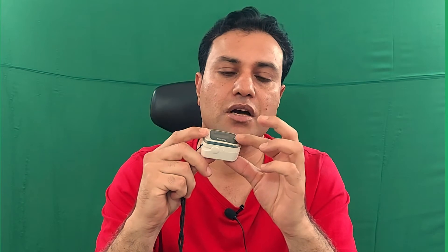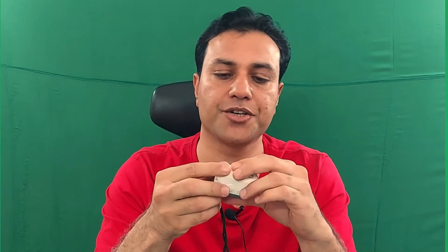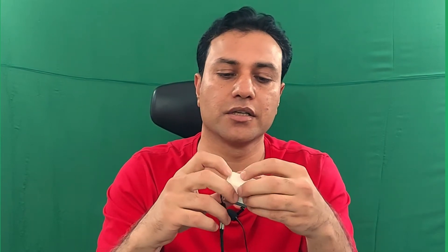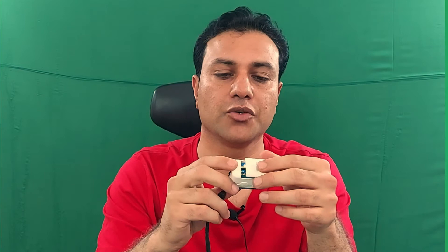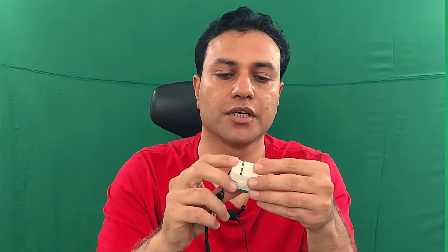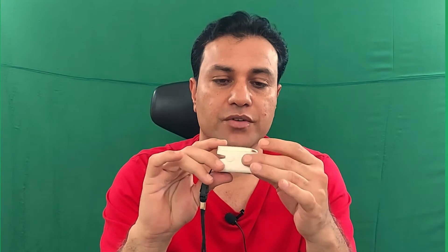This is the turn on/off button, and it is a battery-operated device. You can install batteries here and then you can use it anywhere. Now, which finger is suitable for the pulse oximeter? You can use any finger on your hand.